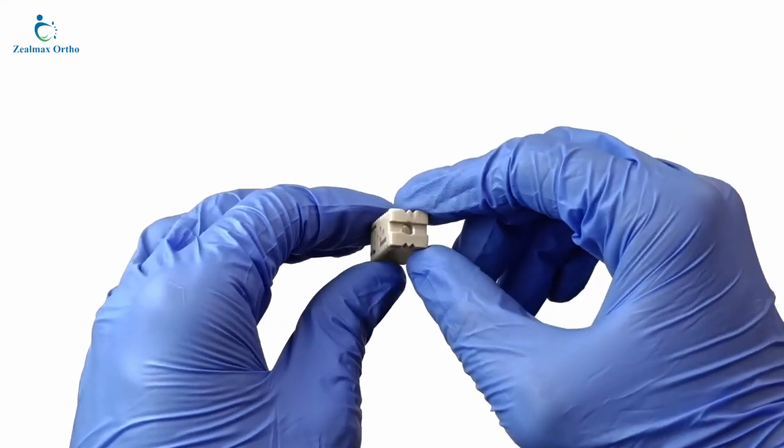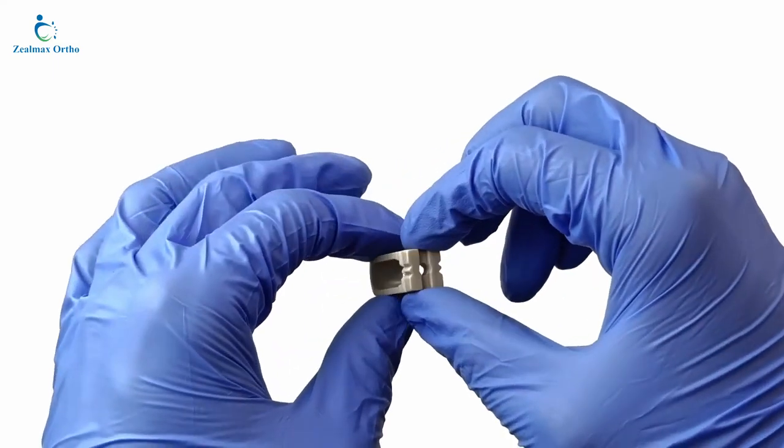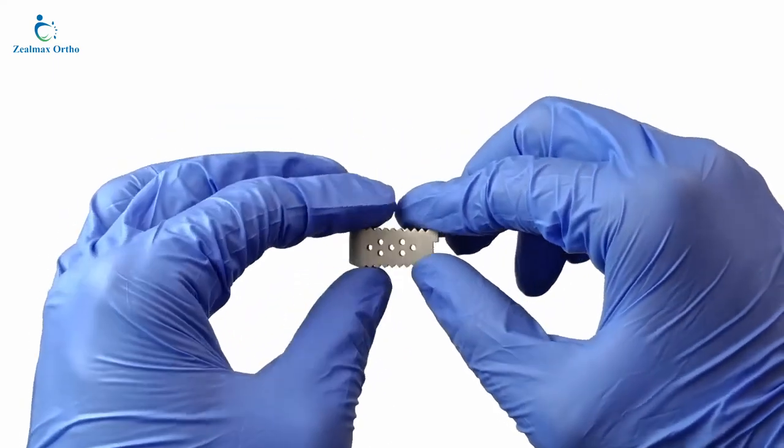Lengths ranging from 20 mm to 30 mm, diameters available are 7 mm to 16 mm at 1 mm variation.